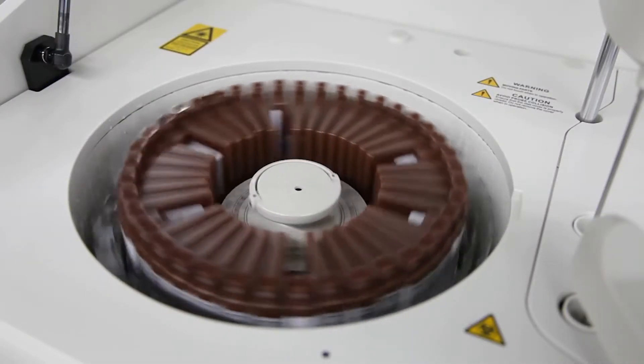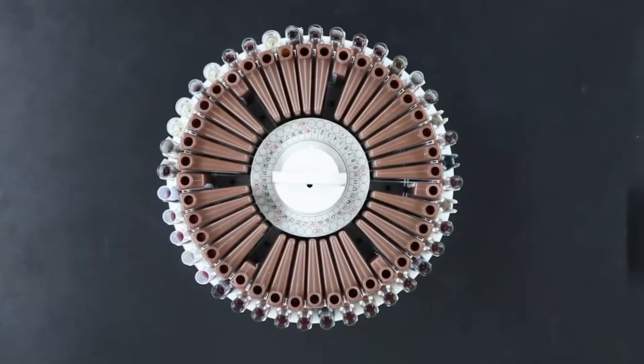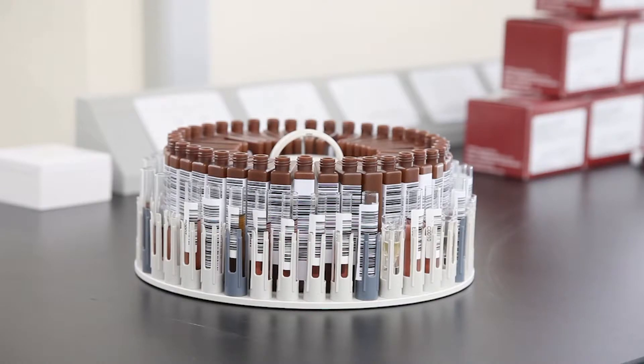The combined sample reagent carousel provides 24-hour continual onboard refrigeration. There are 40 positions on the sample ring and 40 positions on the reagent ring within the same carousel.